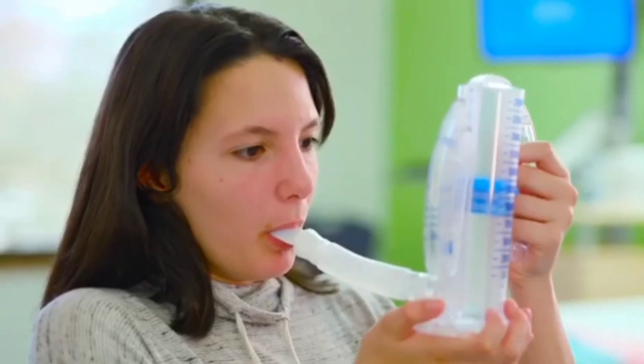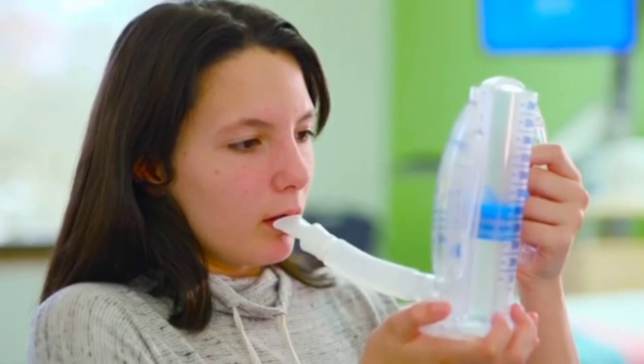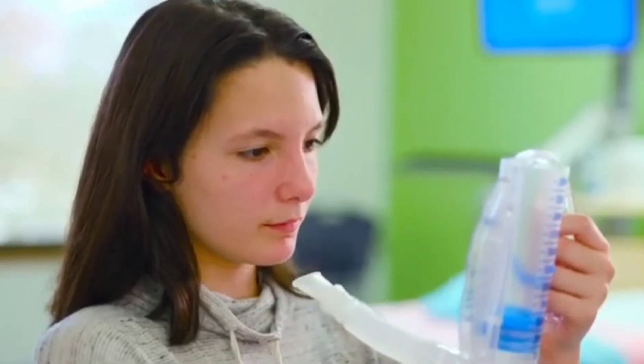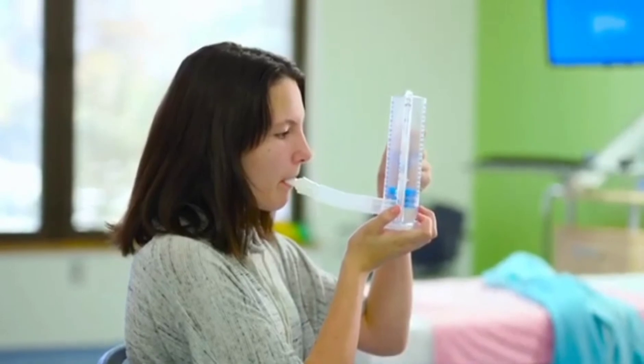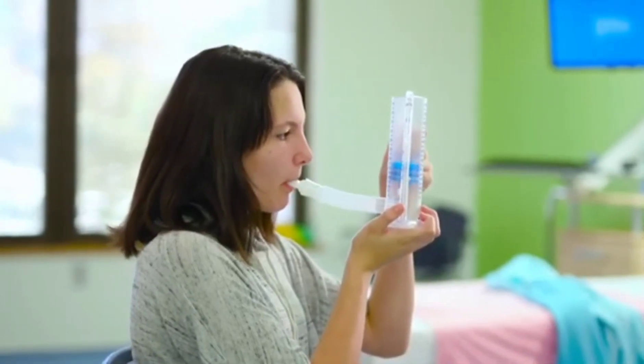Hold your breath for three seconds then let it out slowly. It can take a few tries to hit your mark. Your care team will let you know how often to use the incentive spirometer.